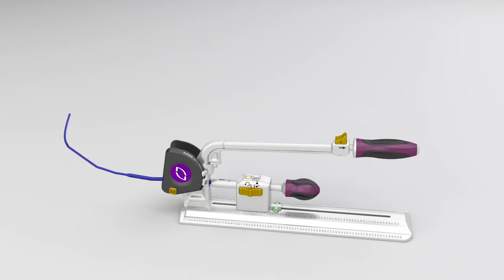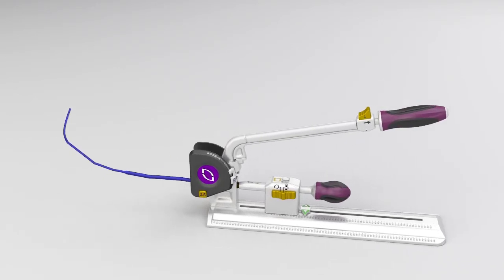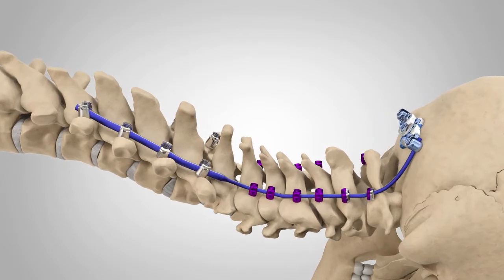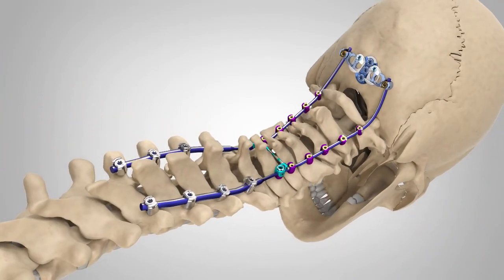Simplify stabilization with Bendini's Patient Specific Rod Bending to navigate delicate cervical anatomy and transition zones, all while confirming alignment goals are accomplished.